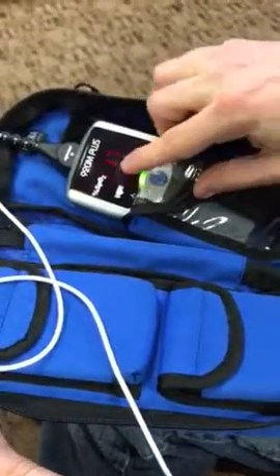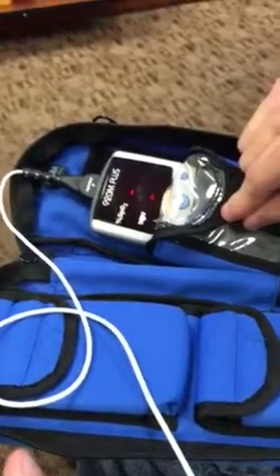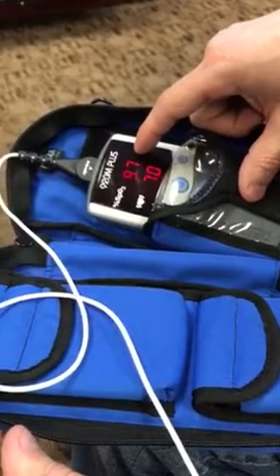Once it's on, hit the blue button here — the big one — and it'll turn on. You'll see some lines right here, but you want to see numbers after a short time. Wait for the numbers; once you've got them, you're good to go.